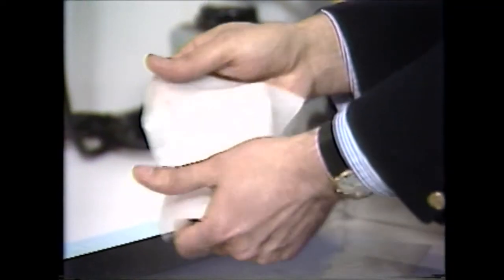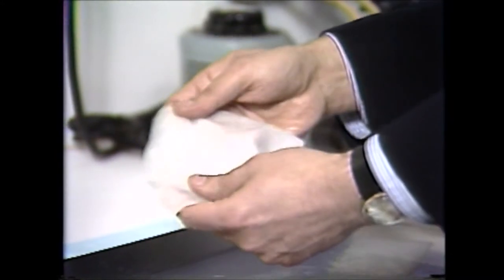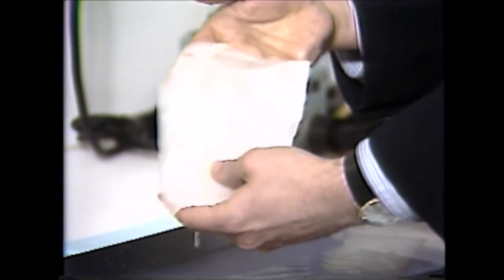You can see that it can be stretched, can be sutured. It is flexible and drapes well over curved surfaces, and it is somewhat transparent.